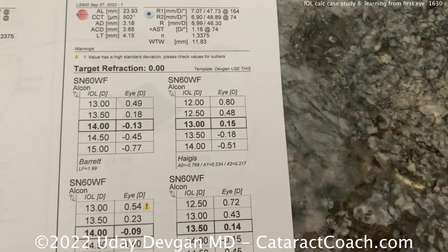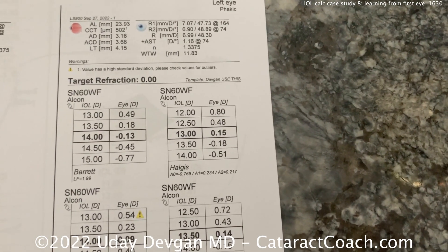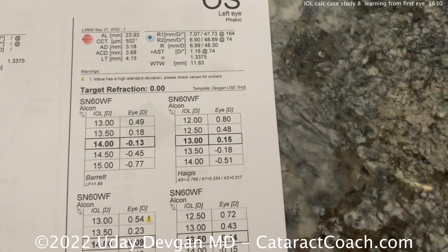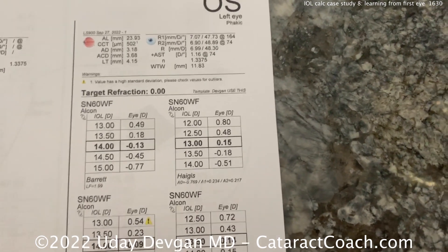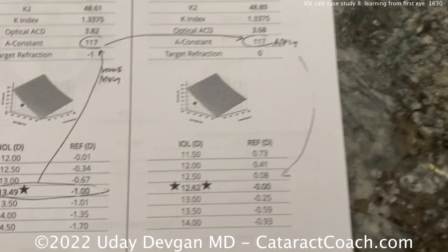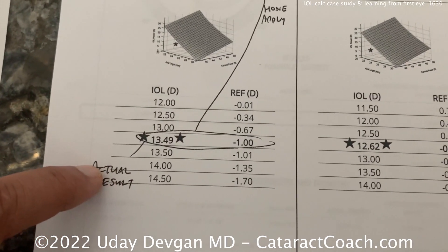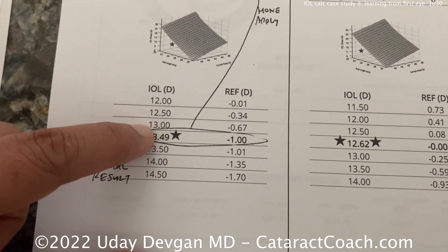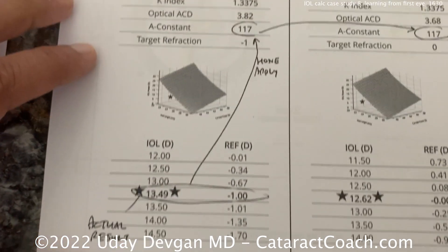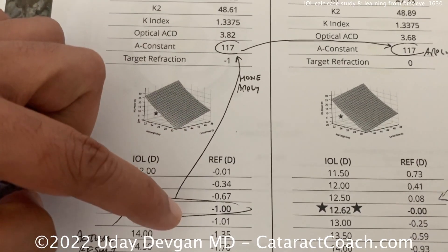So what would you put — maybe a 13.5? Well, that's not taking into account the first eye's healing. Assuming he's going to heal the same way, we can look here at the actual result. He had a 13.5 lens and ended up at minus one.